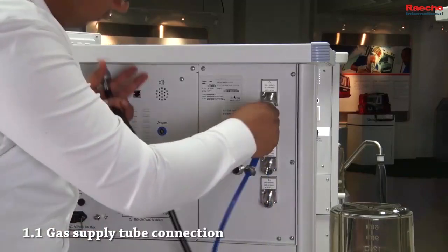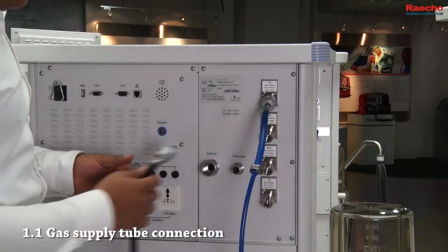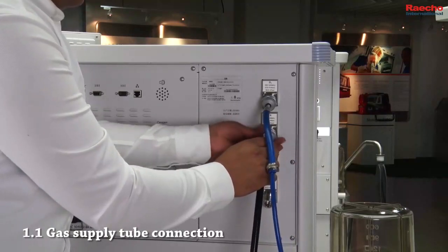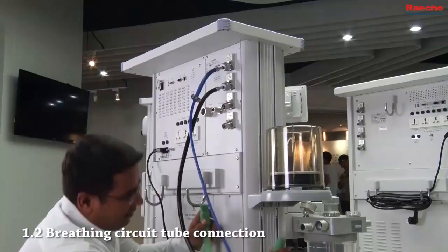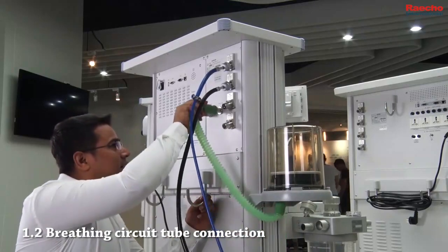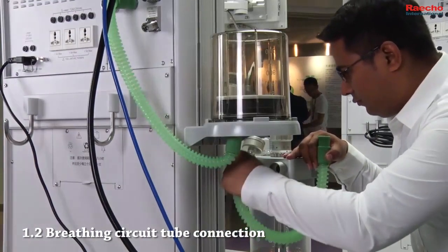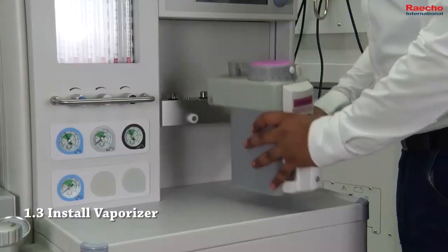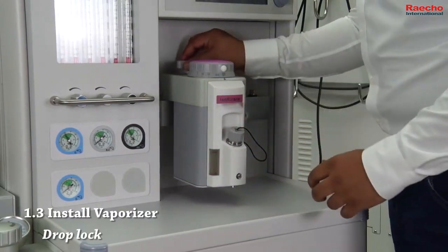Connect oxygen and air gas supply tubes to anesthesia machine. Connect driving gas tube. Using the tube, connect breathing circuit with bellow. Install vaporizer and block it.